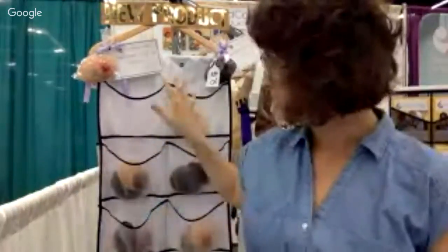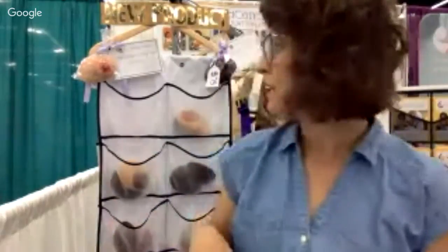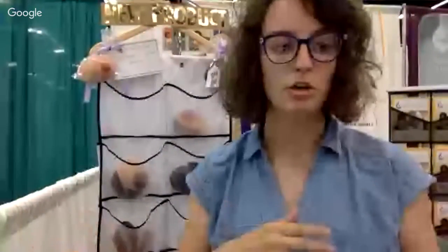So those are just a few examples of our breast health training tools. In the follow-up videos, I'll be showing you all the different tools that we've made so far. What's great about us being at ILCA this week in Portland is that this is our limited edition set of breast health training tools, and we're selling each one for $75. In the fall, we'll be launching a whole comprehensive set of training tools across the age spectrum of conditions that can happen to the breast, across the lactation spectrum — malignancies, infectious disease, autoimmune presentations — and of course representing nipples and areola in different shapes and sizes to help people think about the fact that there's no one perfect shape or size, in all skin colors, all shapes and sizes. It's important to think about what normal variation looks like.